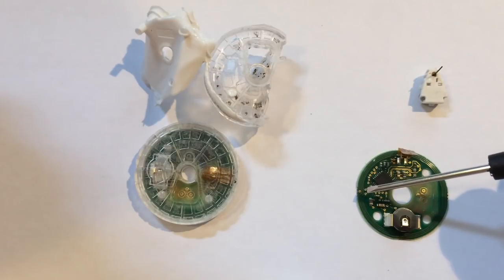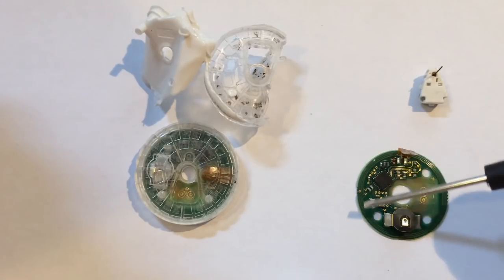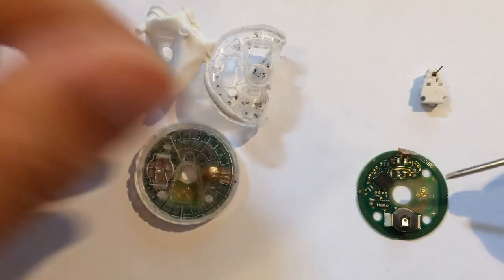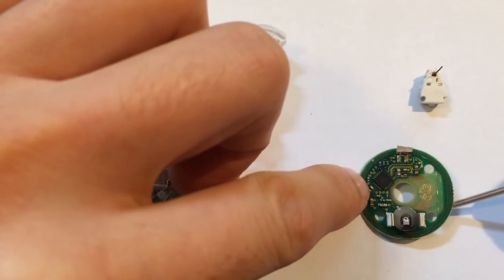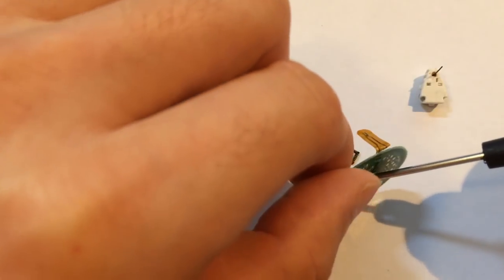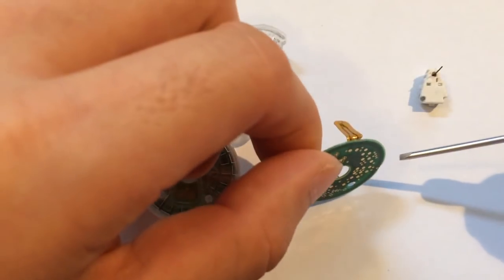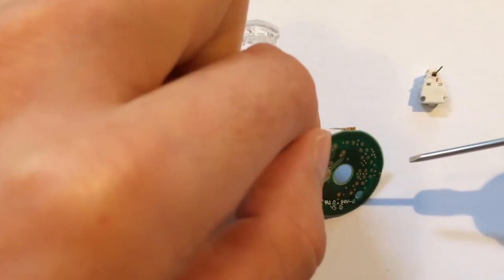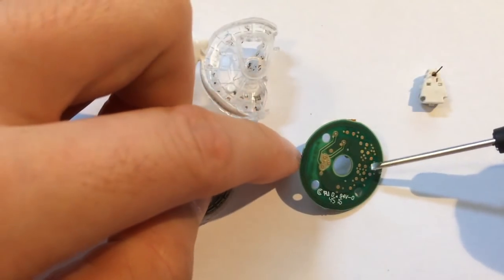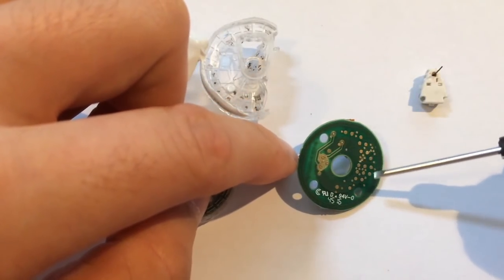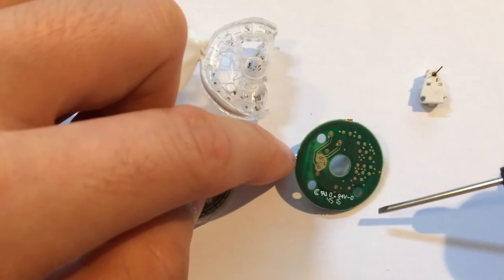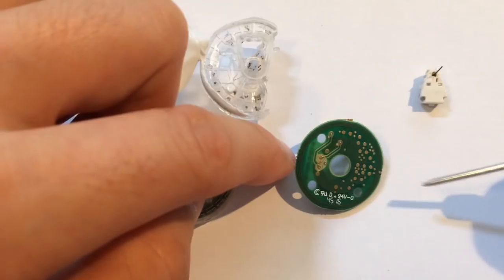On the board, we've also got around the edge the aerial. And underneath is mainly just, oh the chip fell off. Underneath is a bunch of test points and a few other traces, and then I guess a version number and everything.